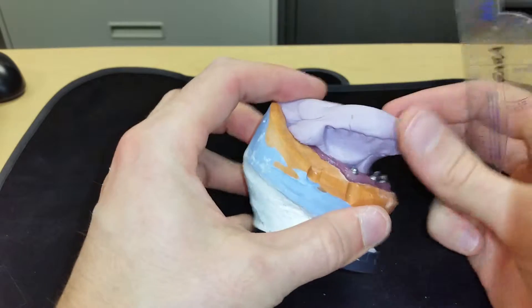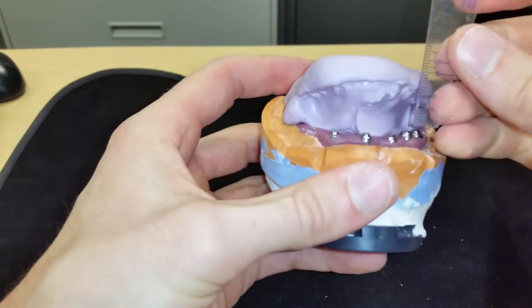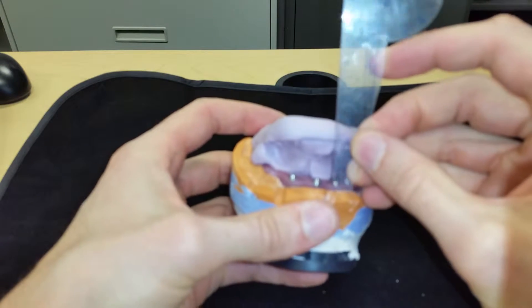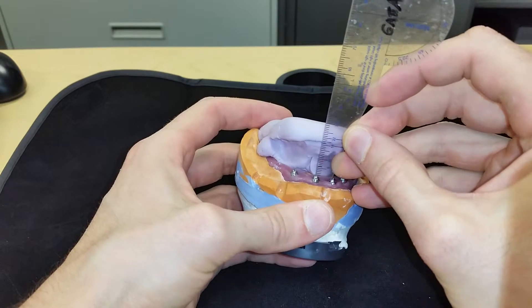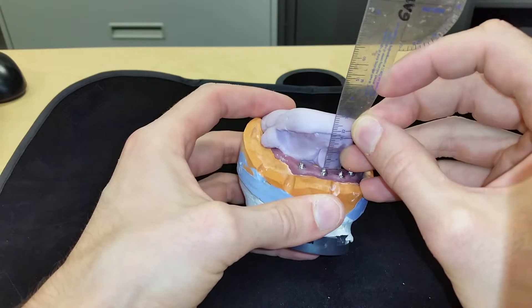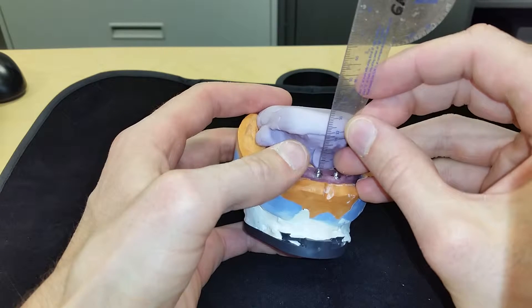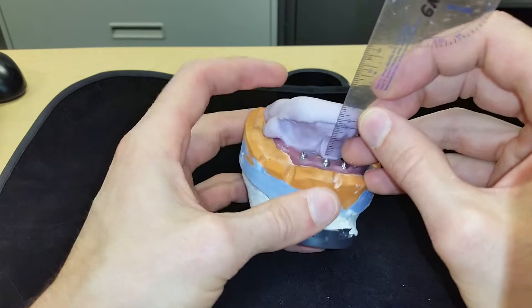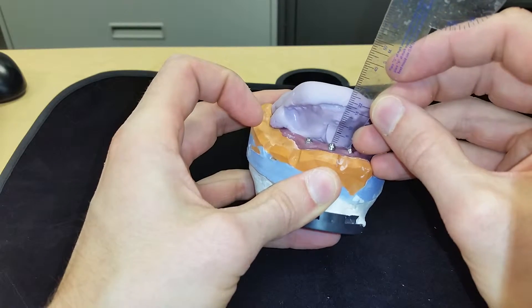This concept of restorative space confused a lot of people — I know it confused me when I was finishing residency. With this silicone matrix, you can see exactly what your restorative space is. From tissue level to incisal edge, we've got about 19 millimeters, so we're pretty golden on having room for your titanium bar, your acrylic, and your teeth. Because 15 millimeters is about that magic number from platform level to incisal edge. We're working at tissue level here, so that eats up a little bit of the restorative space.